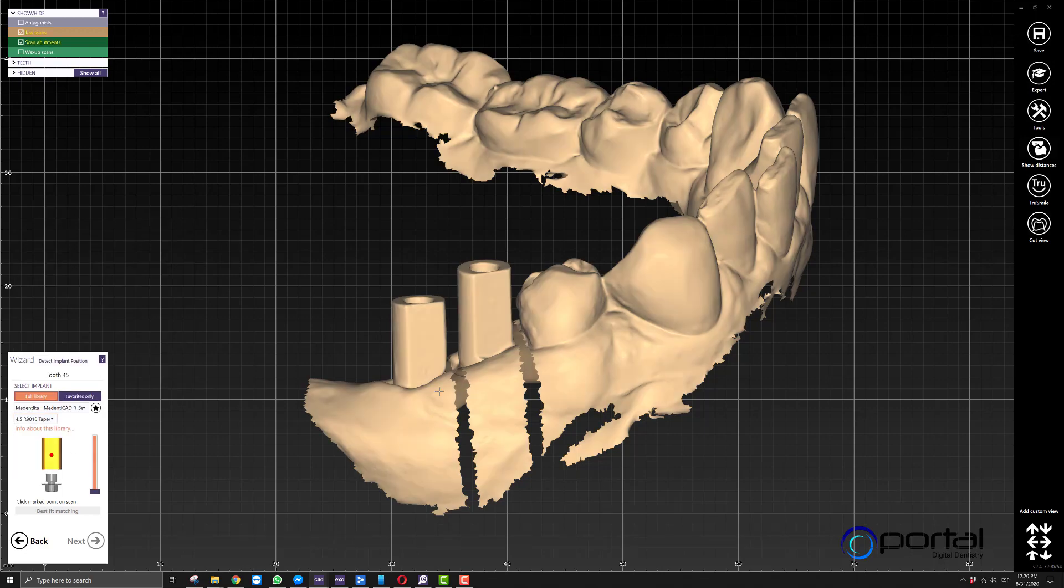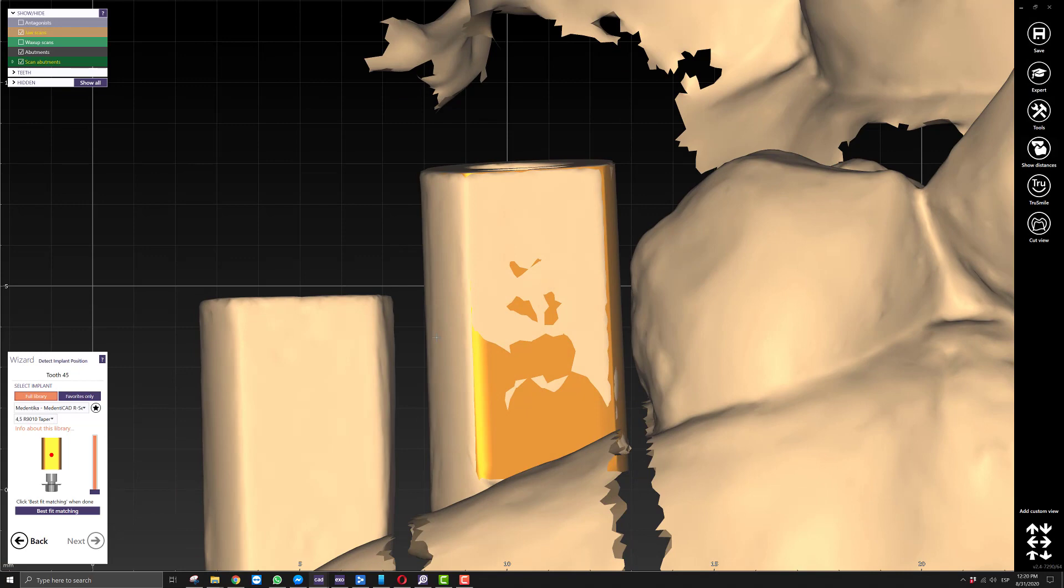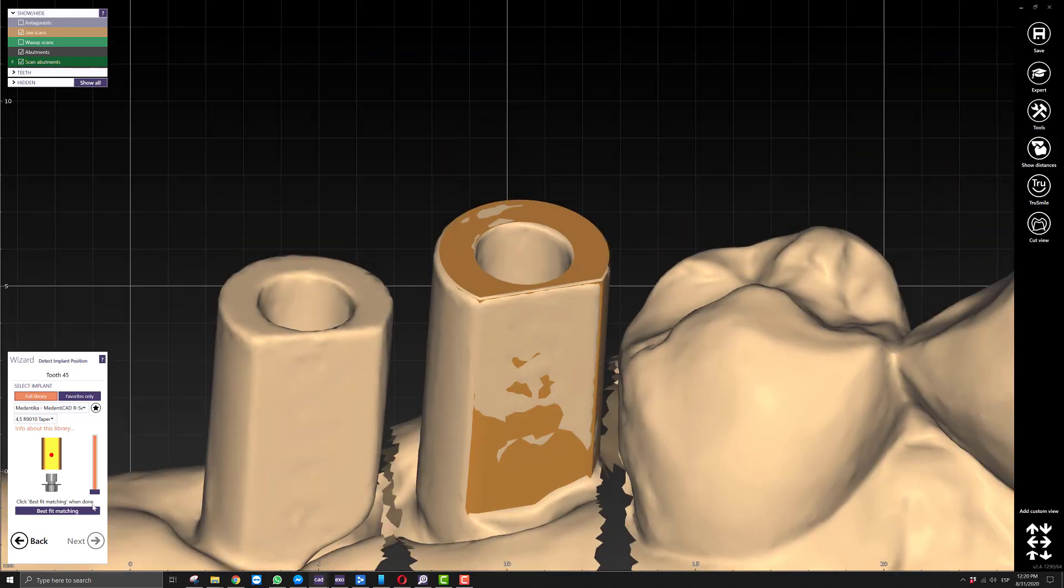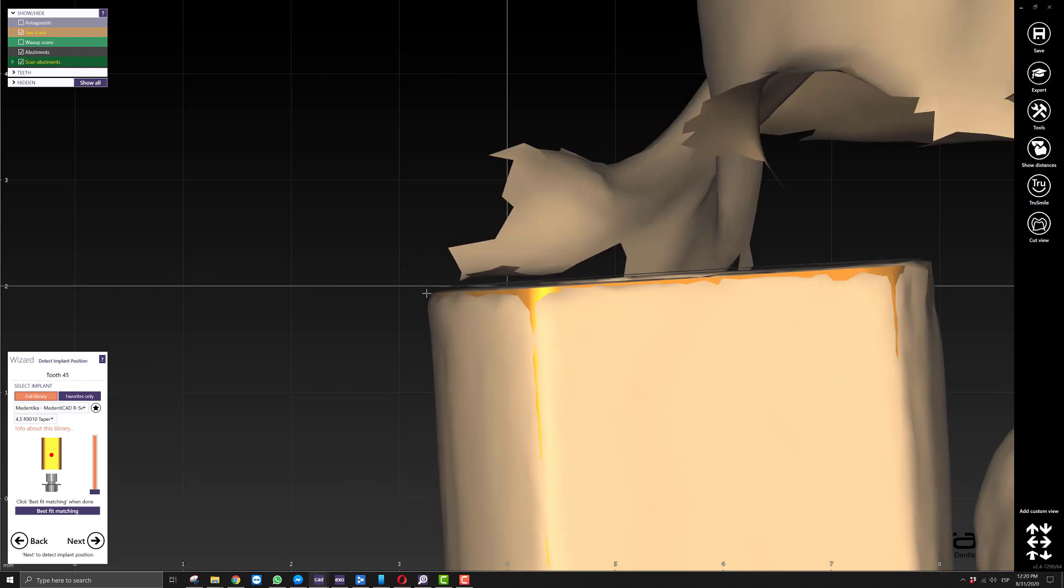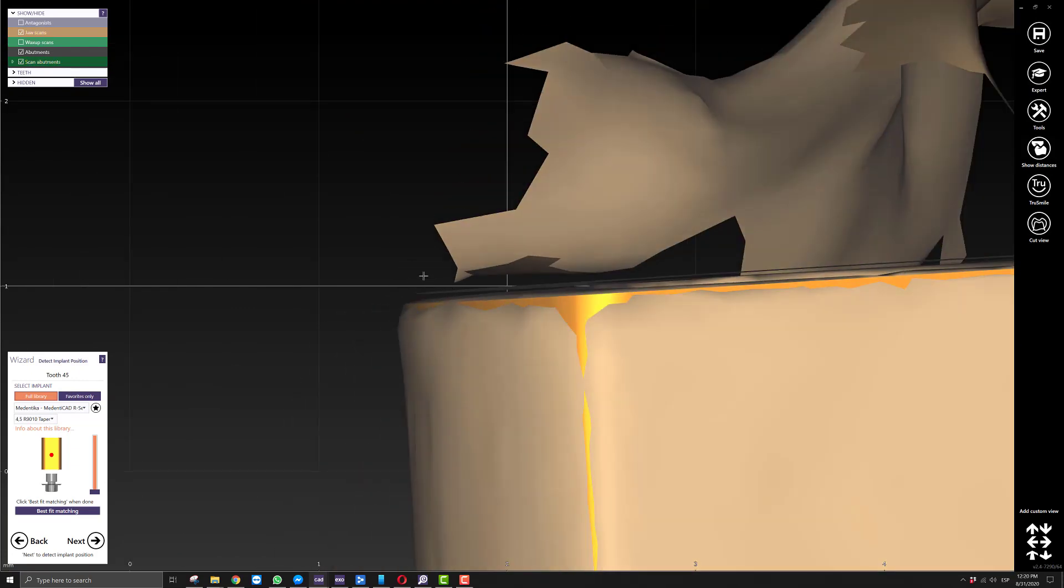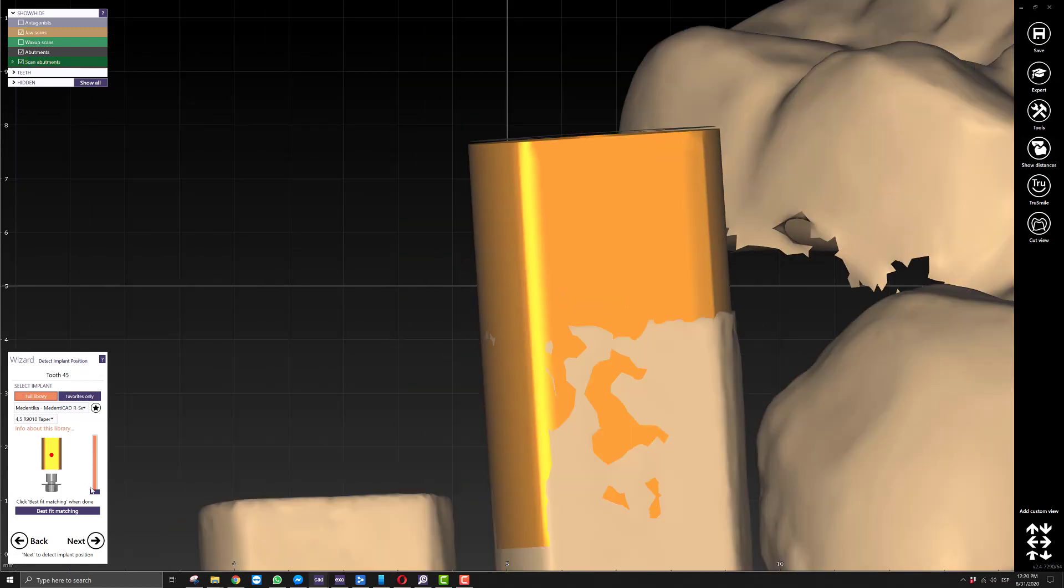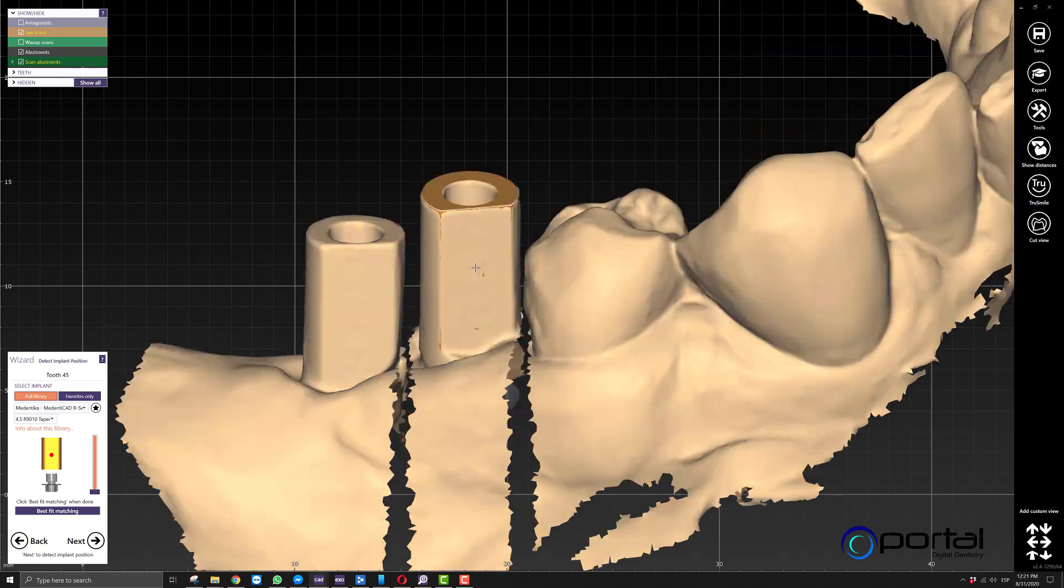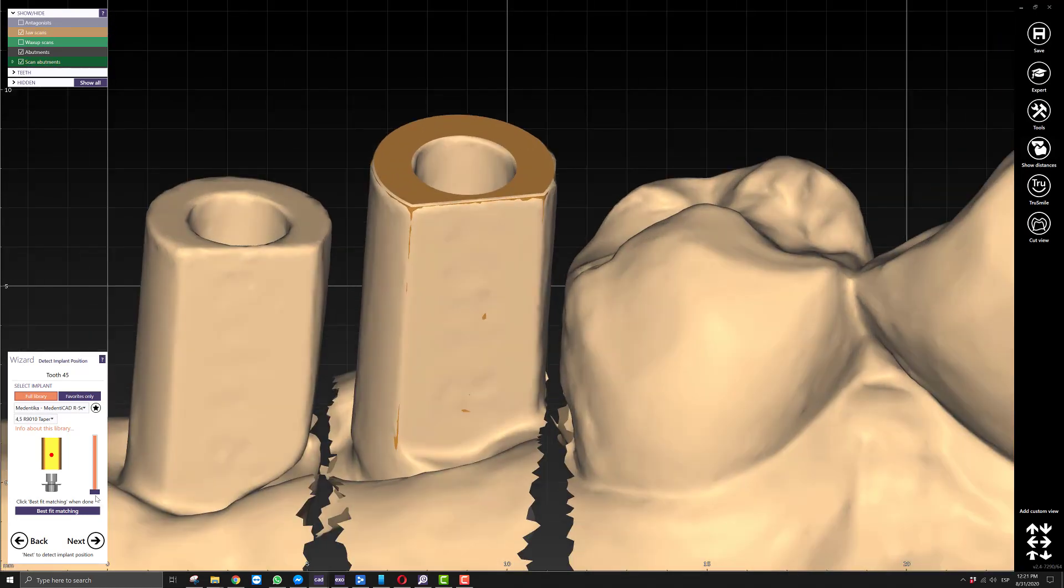These are Medentica basis, so we'll just use this R series. I'll go over this step real quick. As you click to align and click best fit matching, you'll notice the top of our scan body is not aligned correctly—it's off, not by very much, but it's still off. The way I overcome this, depending on how much of the scan body is shown by the scans, you're going to have this issue.